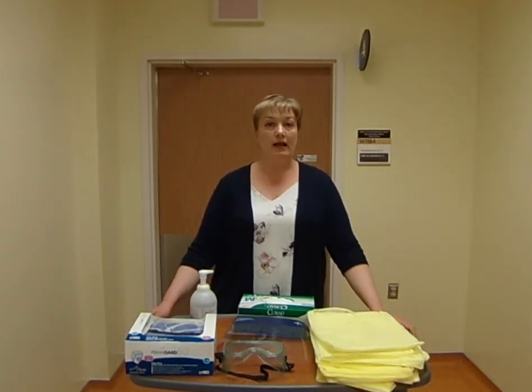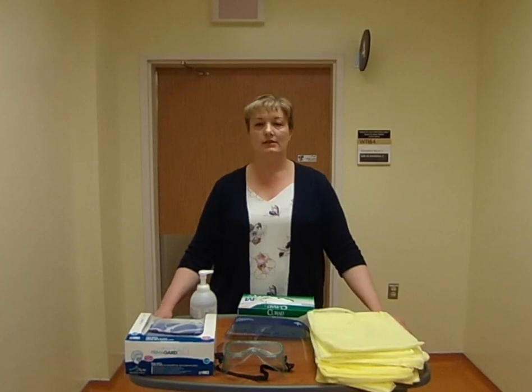Different institutions will have different types of PPE. It doesn't always look the same but it will do the same thing, and depending on the outbreak and the type of outbreak, you may be asked to wear a different combination. It's also very important to wash your hands properly with soap and water or an alcohol-based hand sanitizer like Purell for at least 15 seconds before you put on PPE. When taking off PPE after the visit, you want to wash your hands before you go near your face or eyes, and at the very end when you're done.